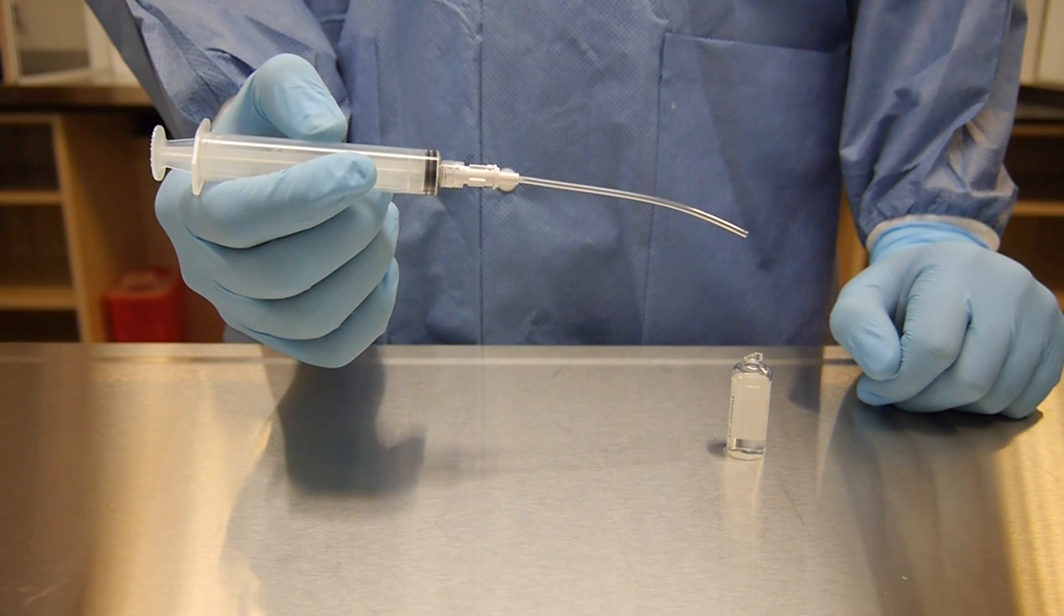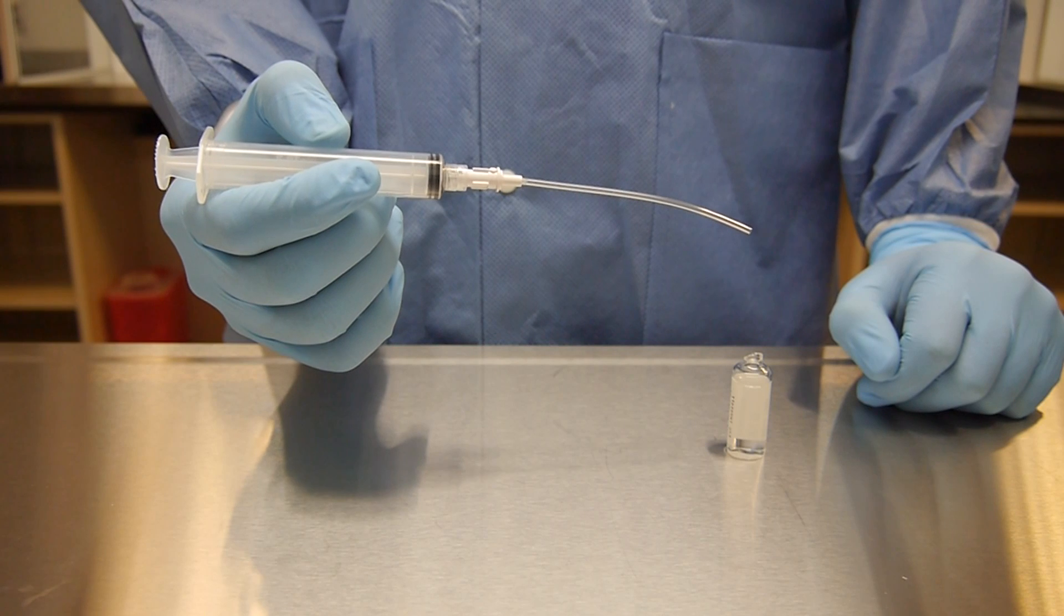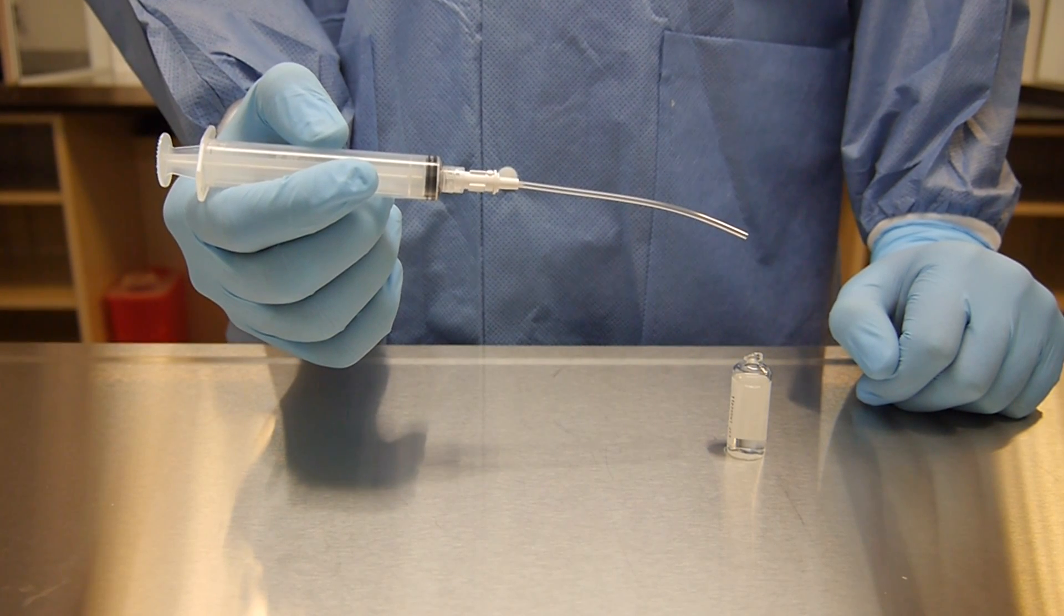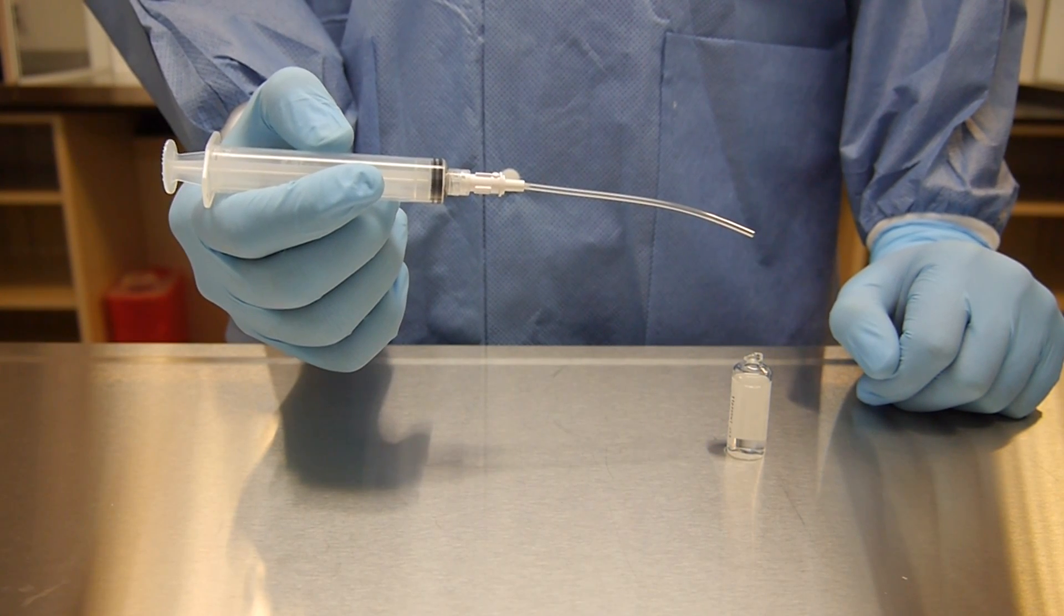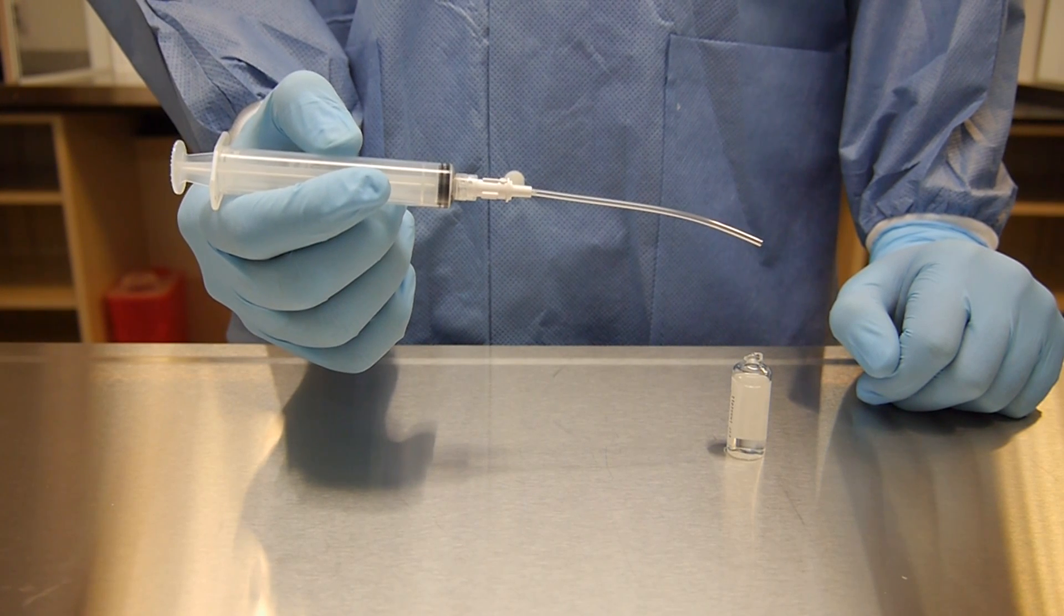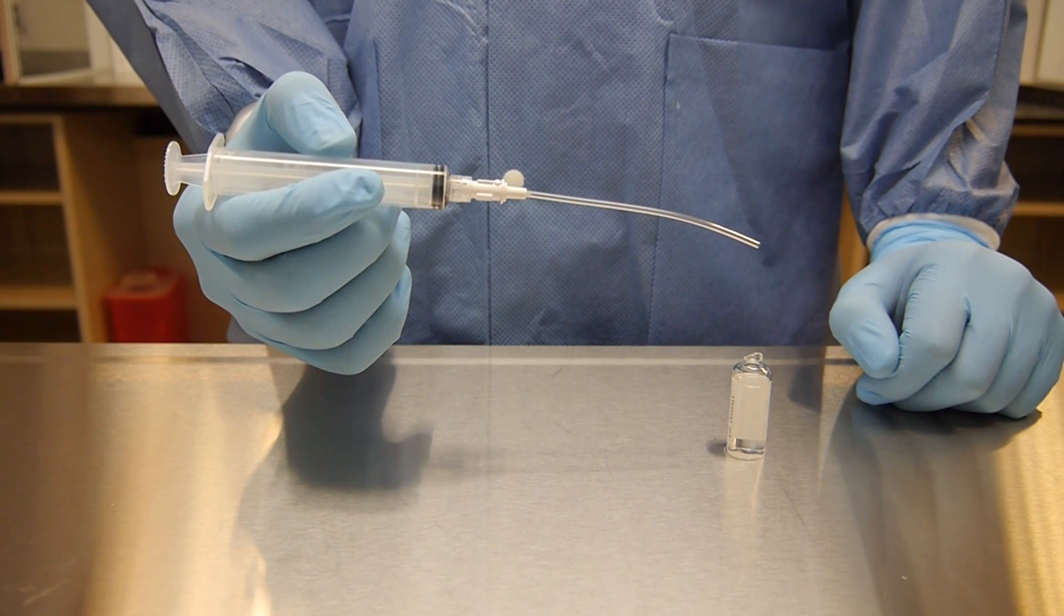This video will provide instructions for using a filter straw to withdraw the contents of an ampule. This is important because glass particles may be present in the ampule once broken. The filter straw ensures that these particles are removed for the preparation and are not infused into the patient.